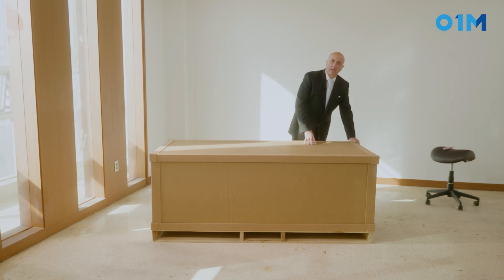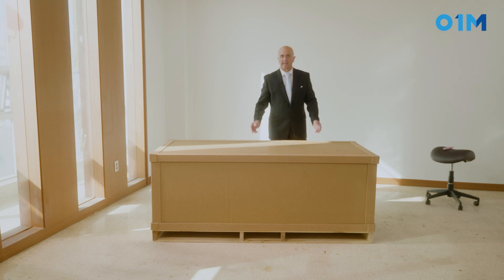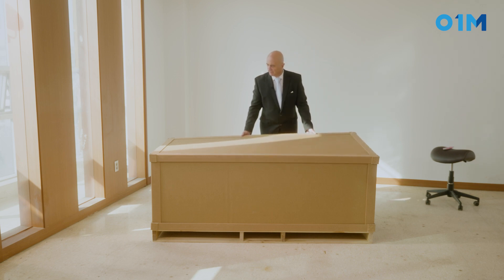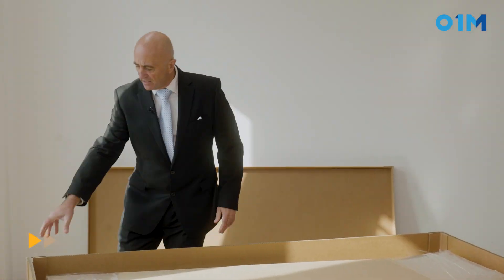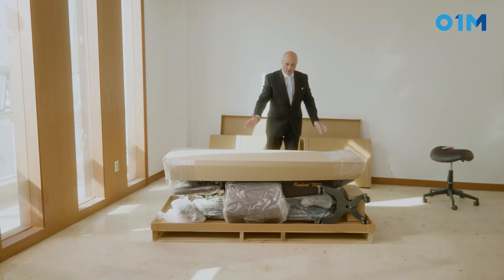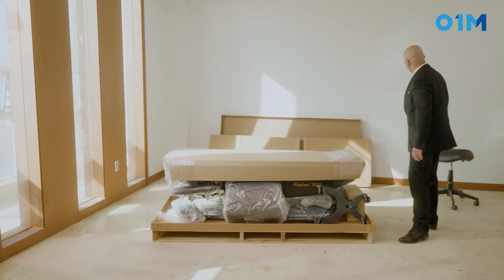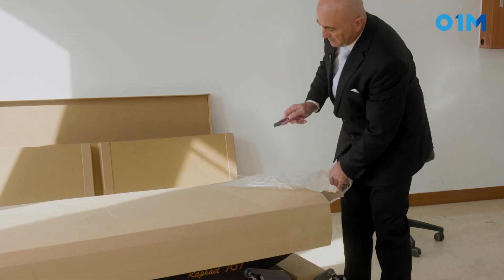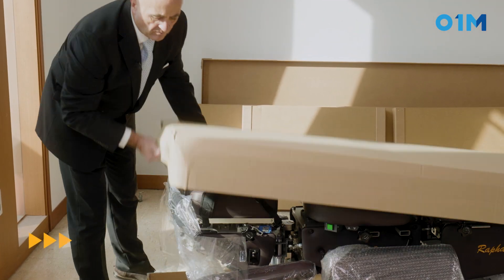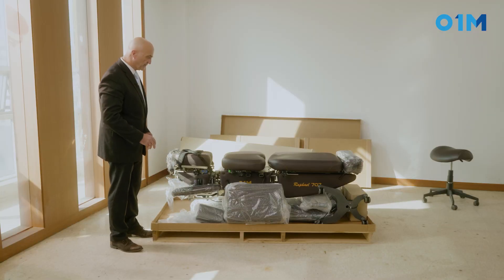The table is wrapped in hard cardboard and you can take it out by yourself. Now you have your table and what you're going to do is basically cut off the plastic, as the table comes with many elements with it.